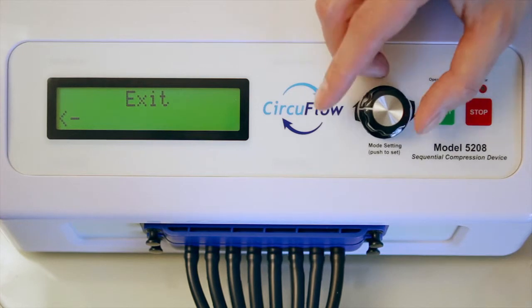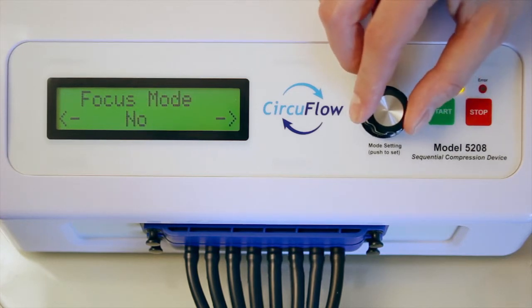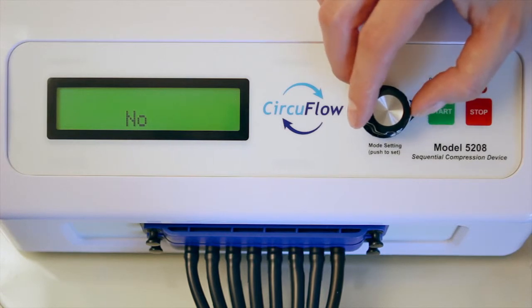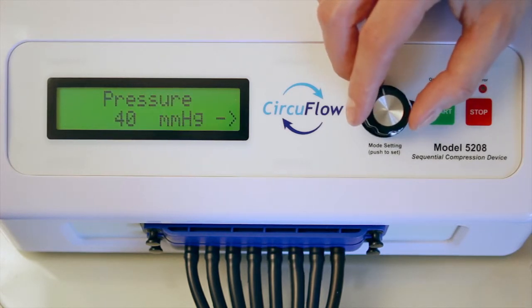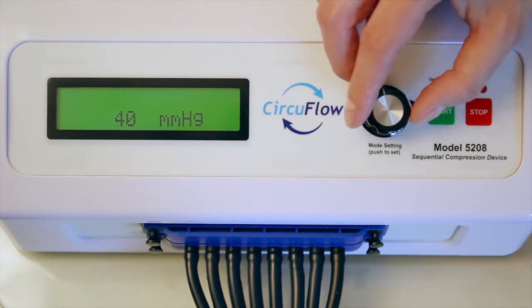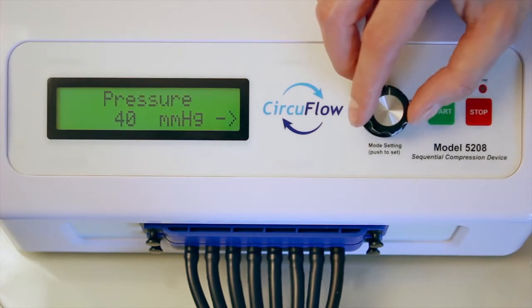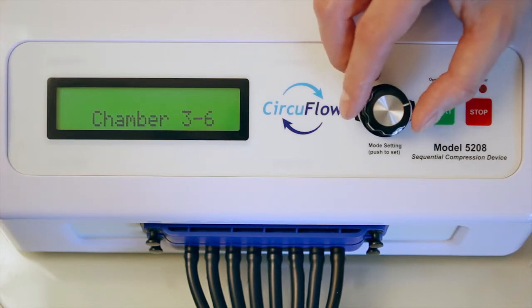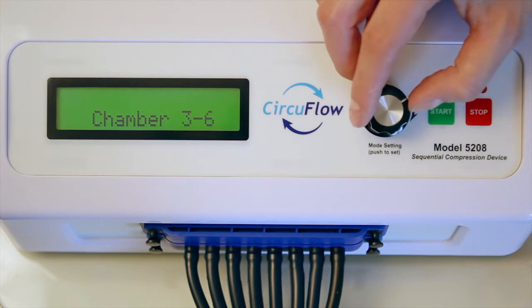Access the sixth parameter, focus mode, by turning the knob to the right and pushing to select. Choose whether focus mode should be turned on or off. If it should be on, select which chambers to focus on and what pressure to use, choosing between 40 to 50 millimeters of mercury. Press the knob to confirm all selections.